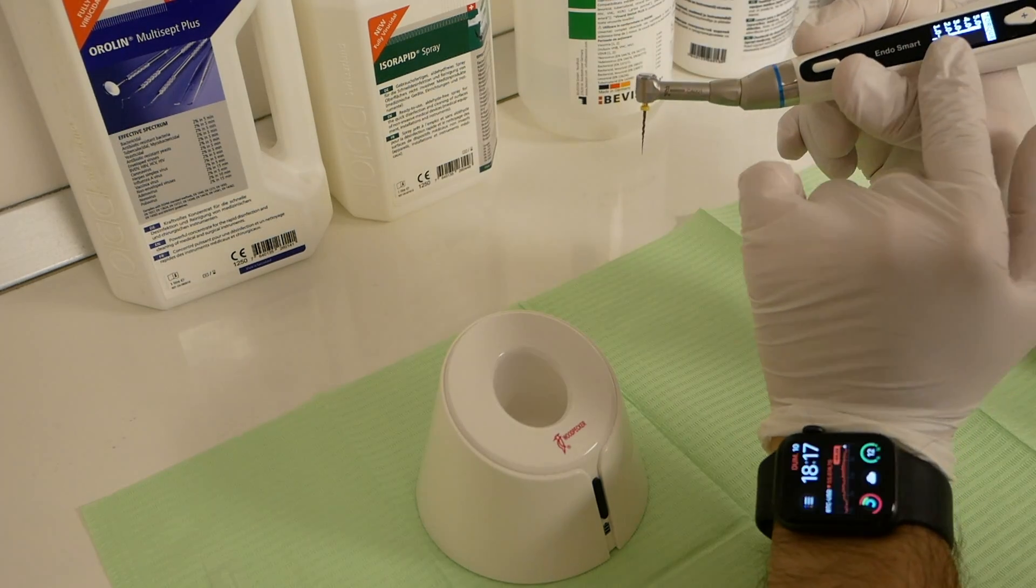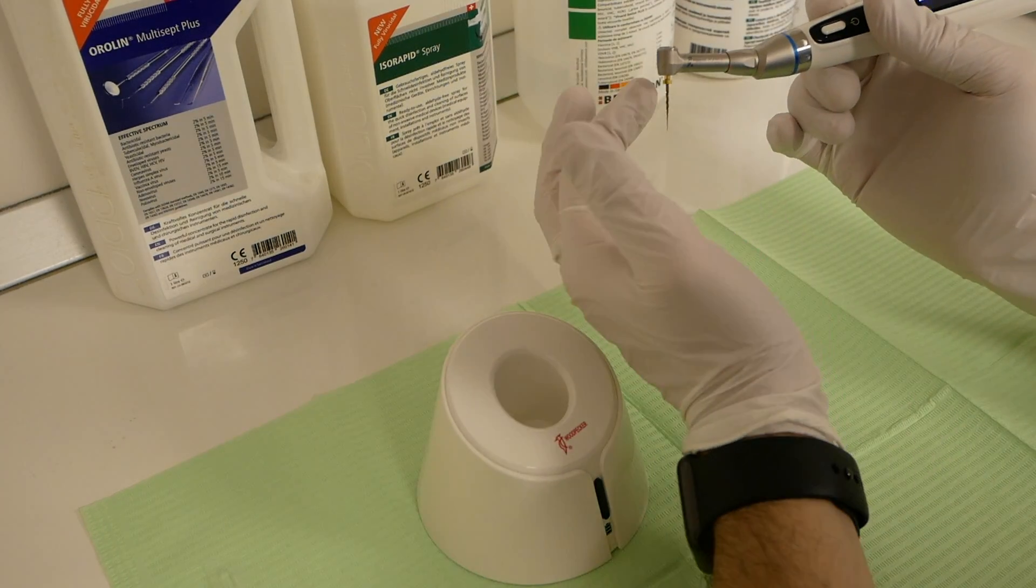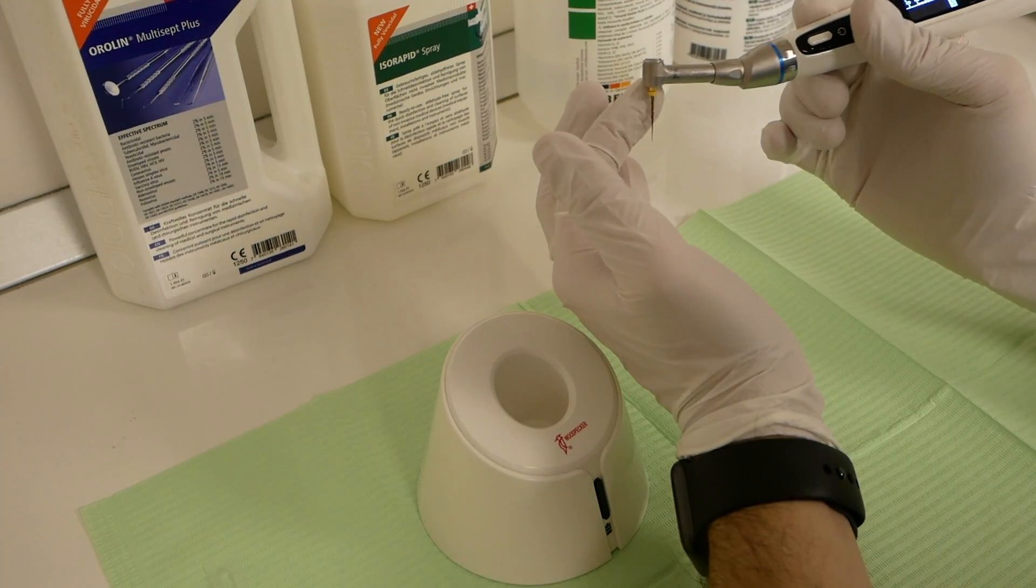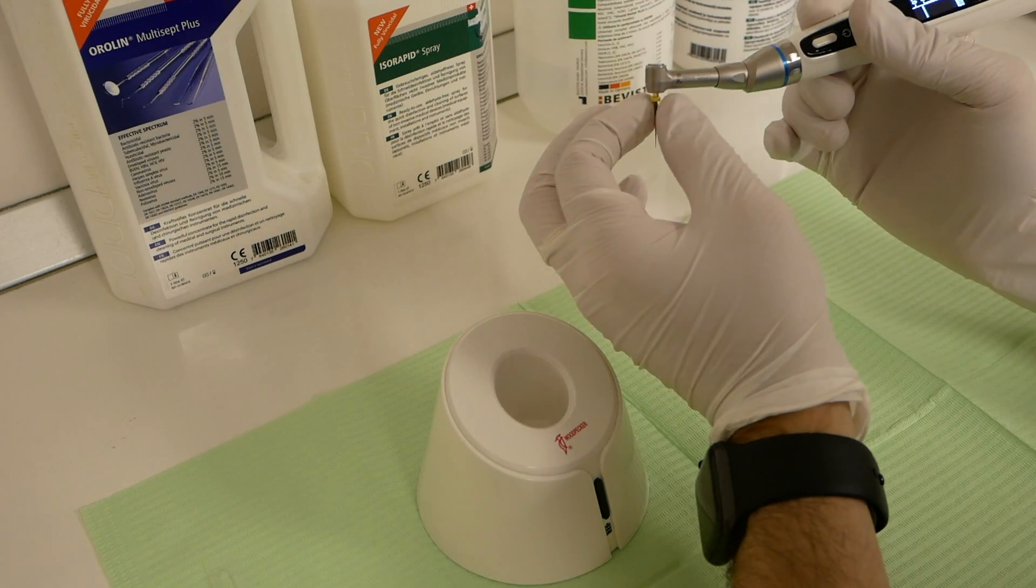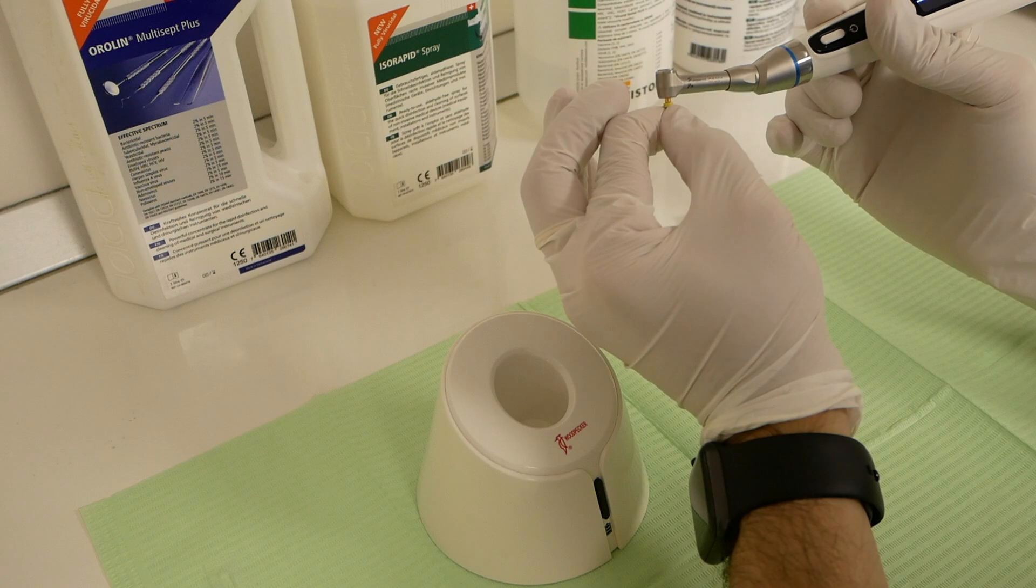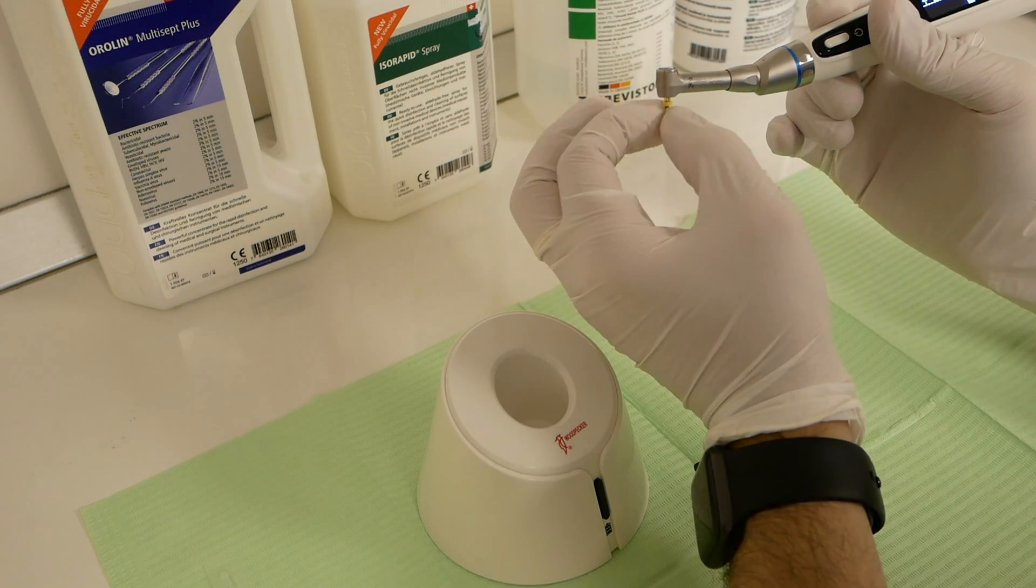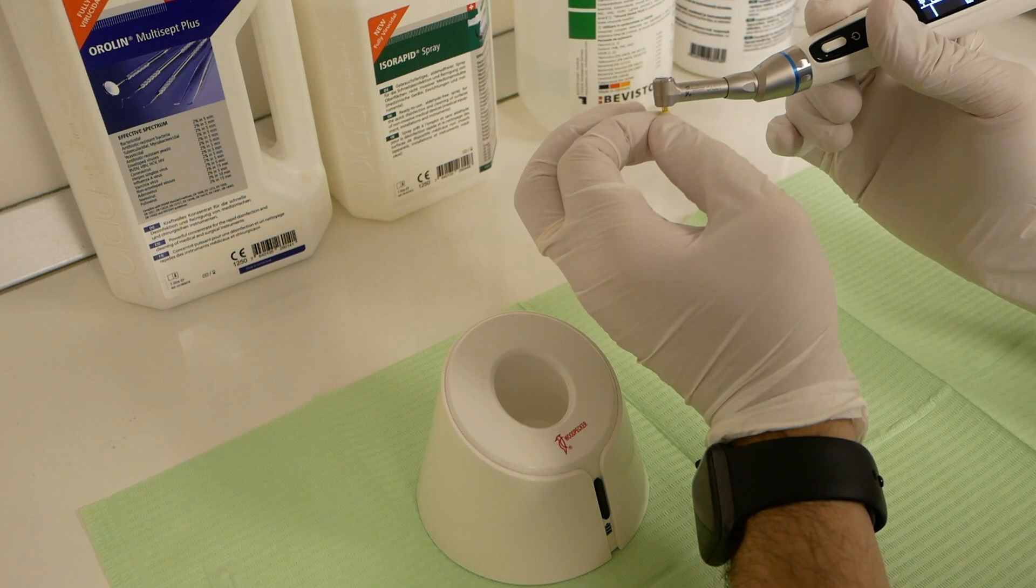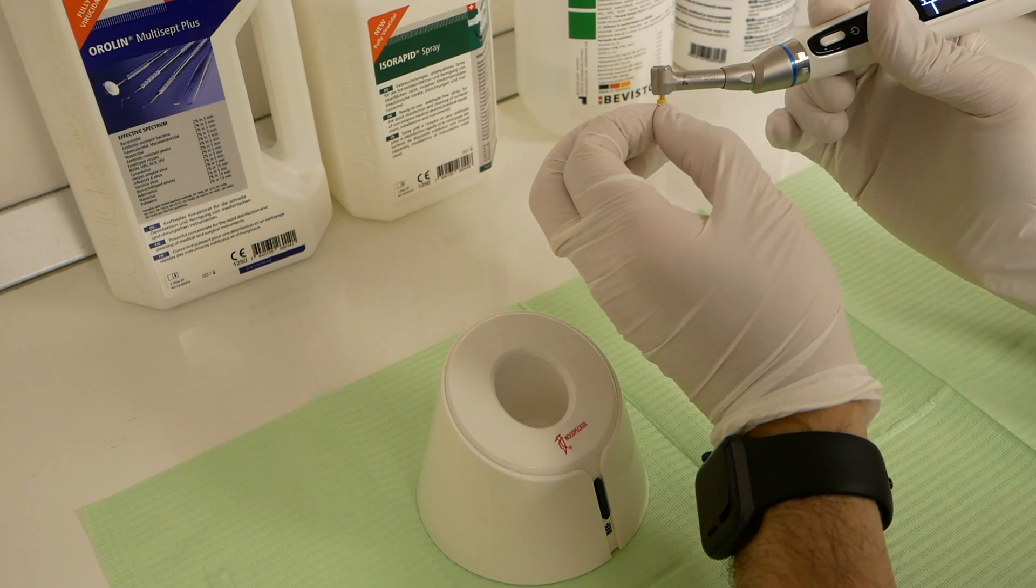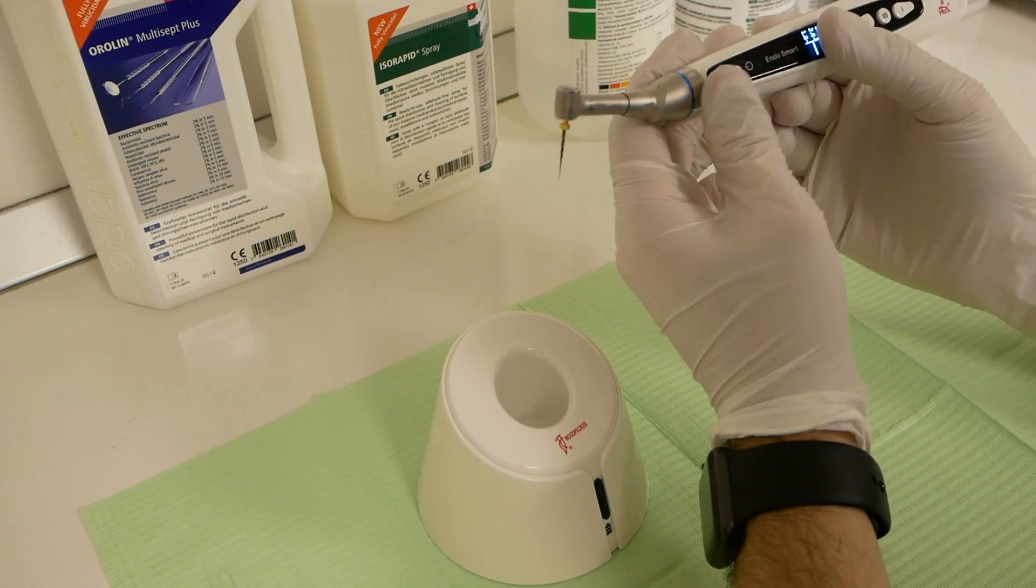If the selected torque for the file is reached, the motor will automatically auto-reverse. Let's try to emulate this. As you can see, it auto-reverses.